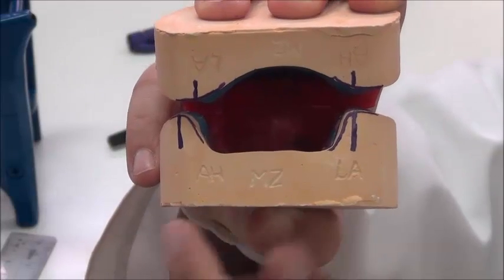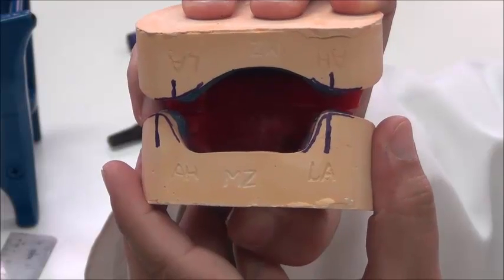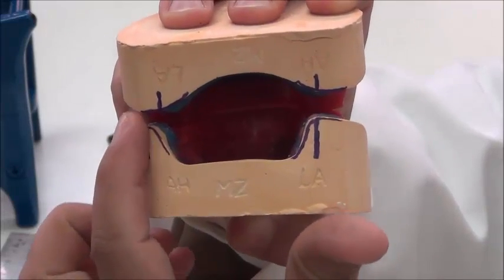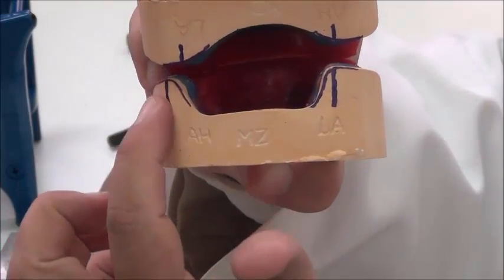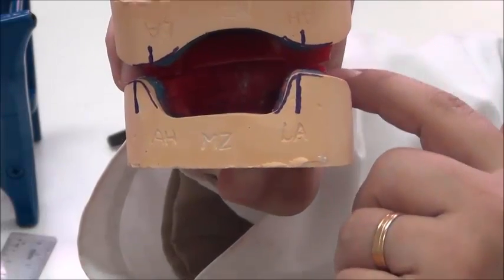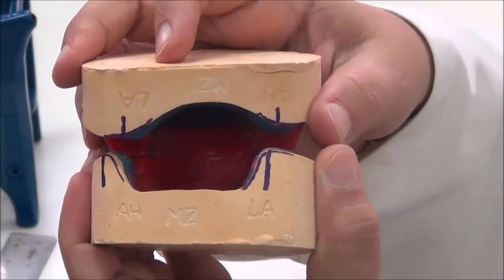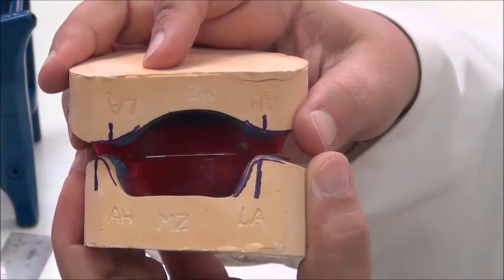I'm looking for the distance, the vertical distance between the cast to be the same. So for example, in this articulation, here the distance is larger than the distance in between the two arcs. That means the wax rim measurements are not the same on both sides. So I have to adjust this wax rim. But suppose that they are in the same distance, I need then to shift to the left and the right and make sure that they are oriented over each other correctly.